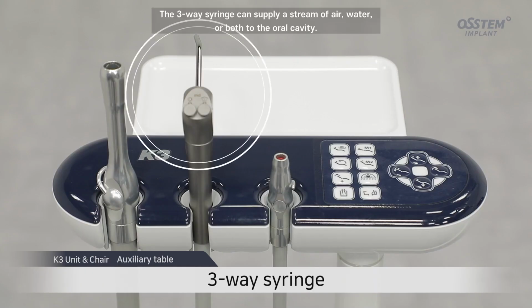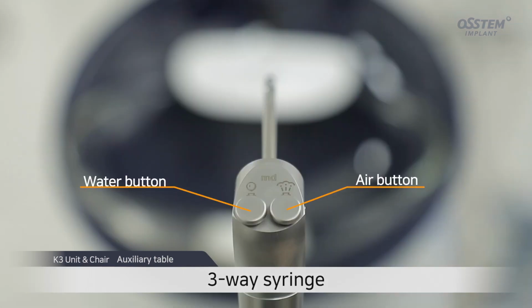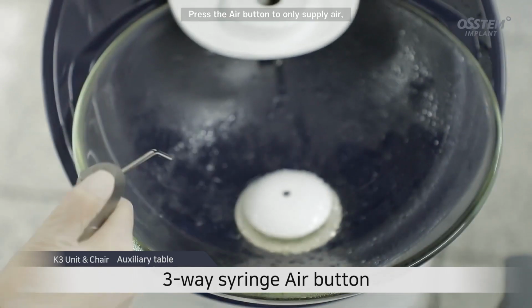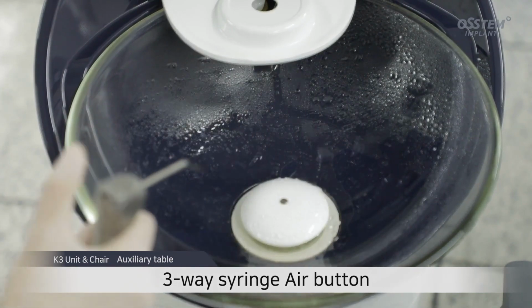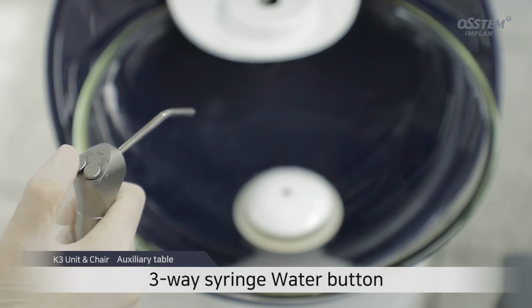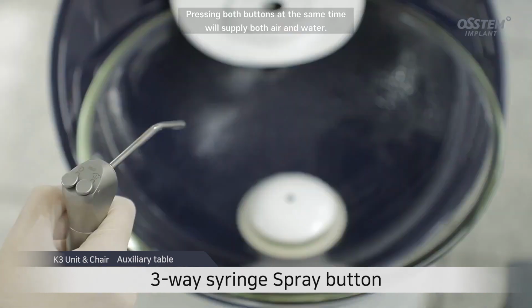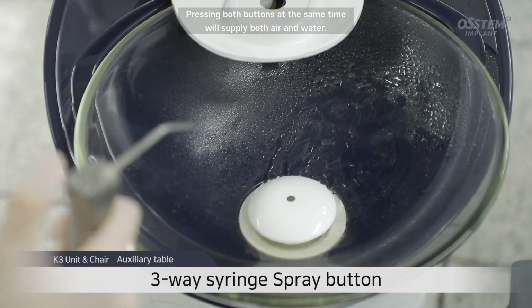The three-way syringe can supply a stream of air, water, or both to the oral cavity. Press the air button to only supply air. And press the water button to only supply water. Pressing both buttons at the same time will supply both air and water.